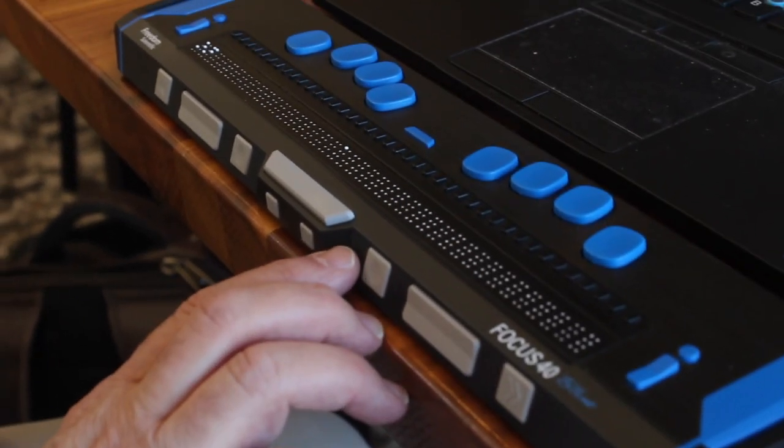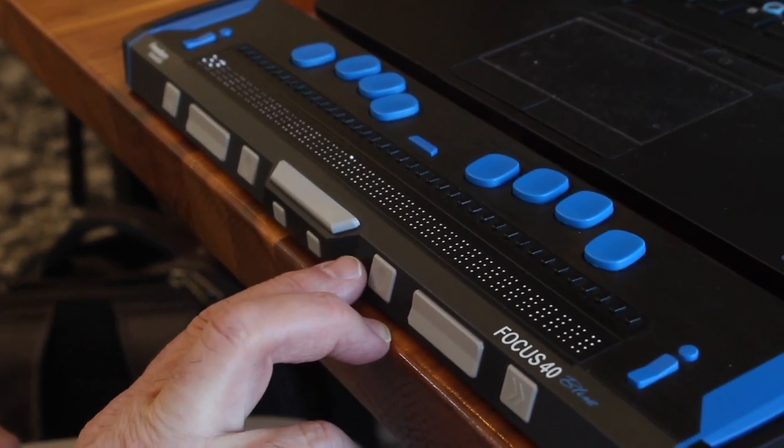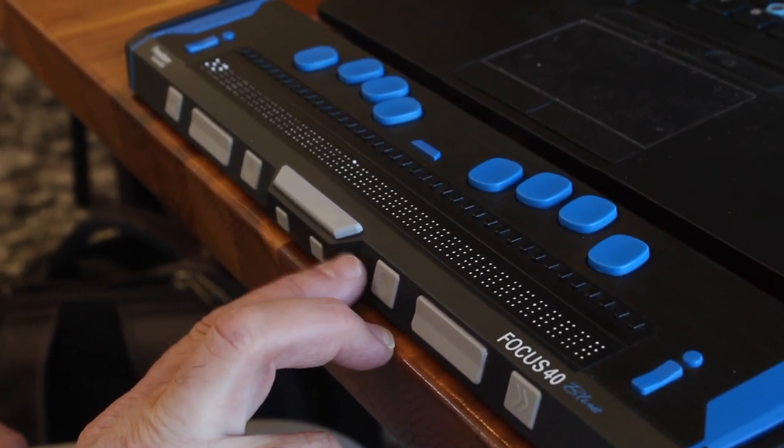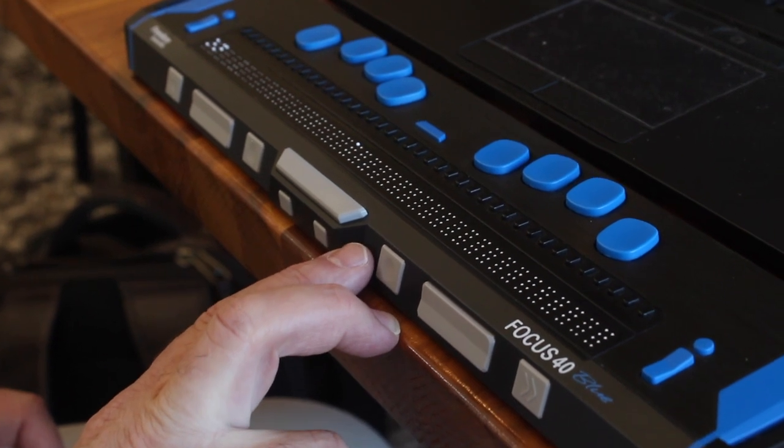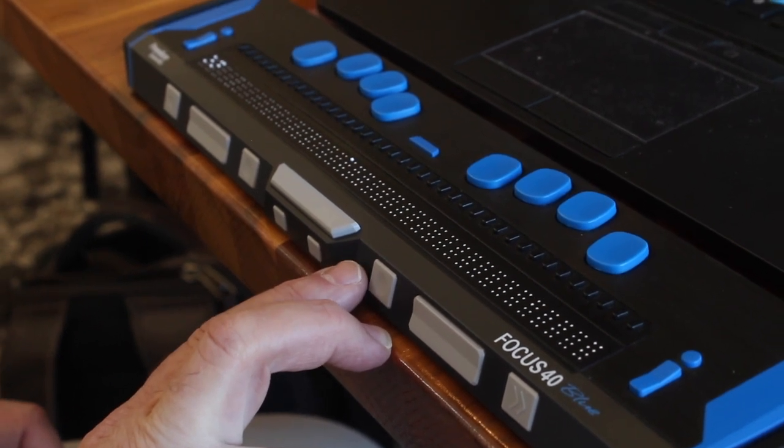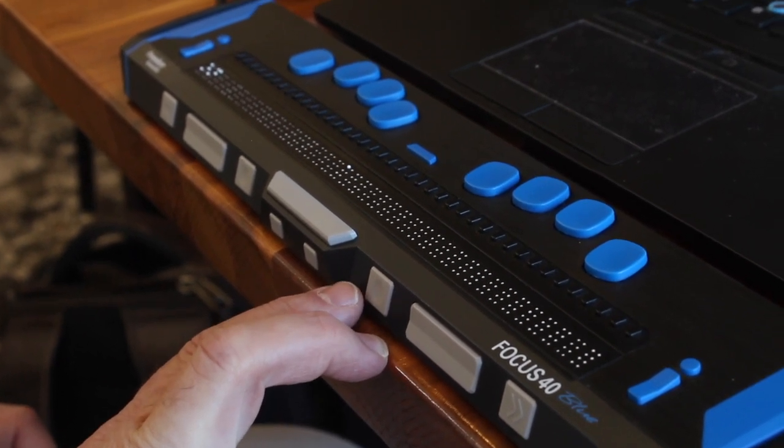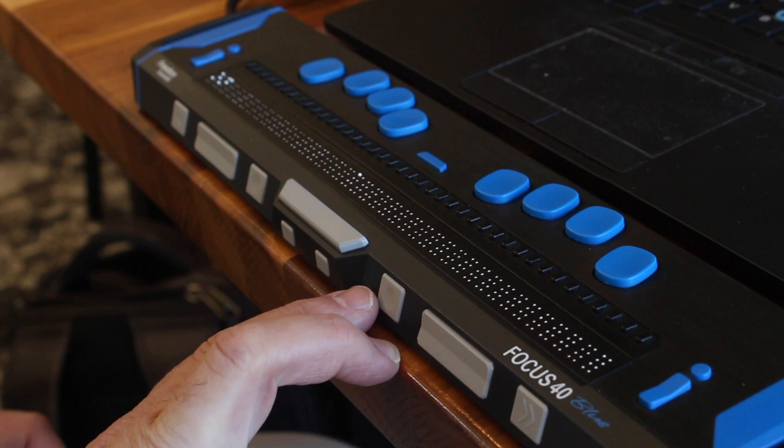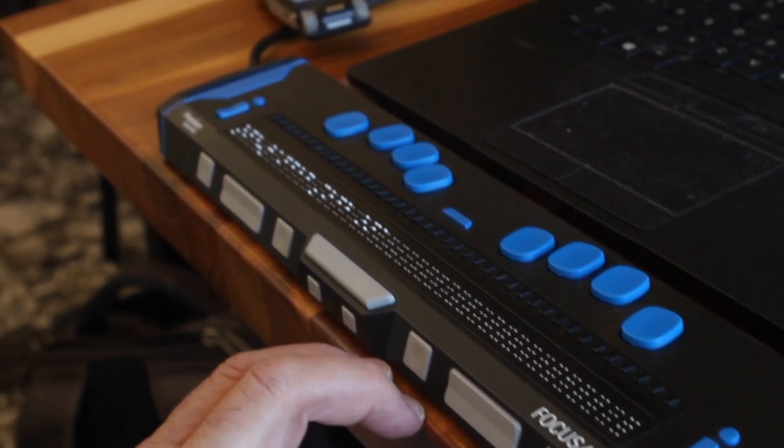I can accept that change by pressing the right selector button. Remember, the right selector buttons are the buttons that are just immediately to the left and right of the shift keys, and they have the concave, the dished-in feeling top. I'll press that right selector button.